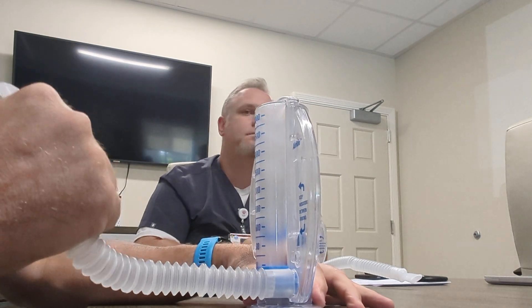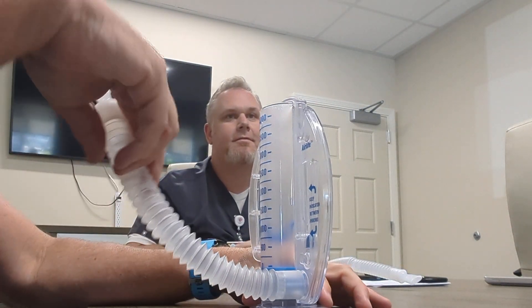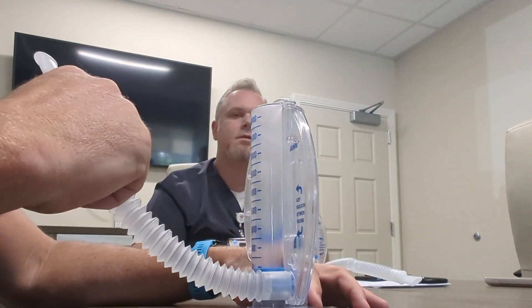I'm going to pause here and ask - have you guys seen someone do this, or do you just hand it to them and say good luck? Okay. Can we give one to Wes and see how he does? I just want to see how he does it without giving instructions first - I want to see his baseline performance.